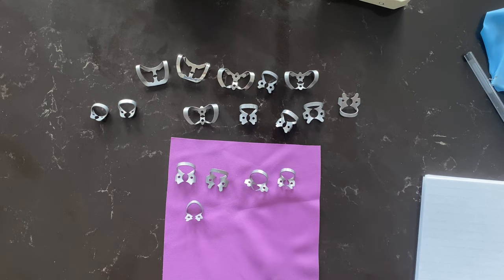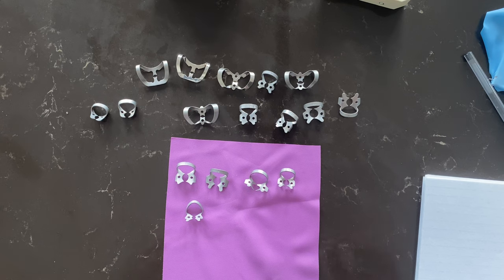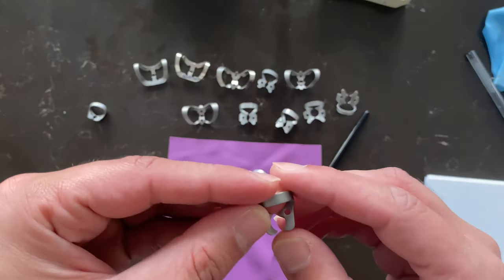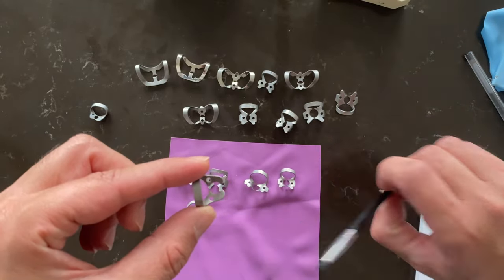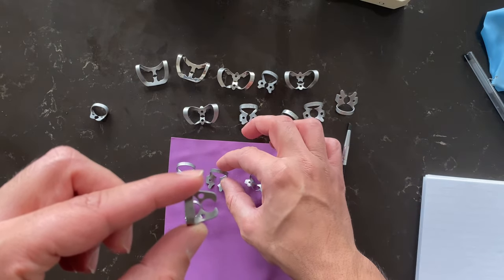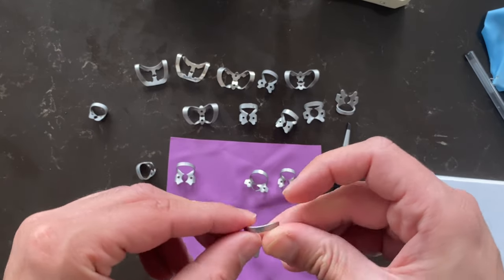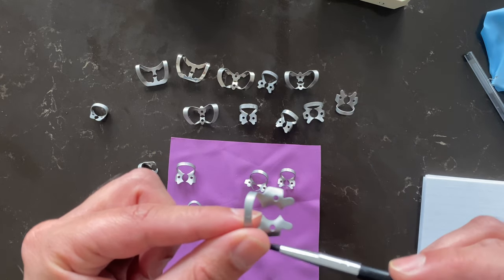The first thing you need to understand is what is a winged clamp and what is a non-winged clamp, or what we call the wingless clamp. Look at this clamp here — if you notice, there's no wing on the side. Comparing it to this one, it has a wing here on the side. So this is a winged clamp — it has two wings on the side.